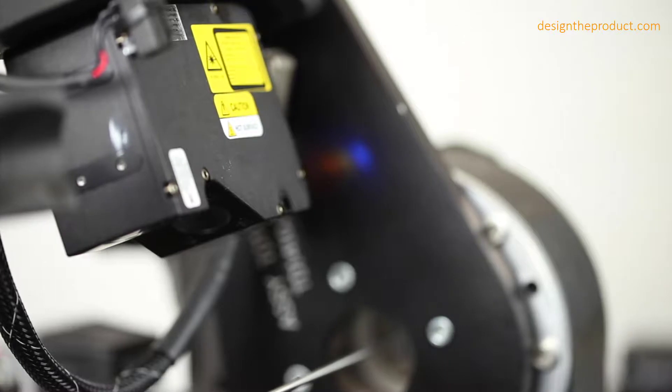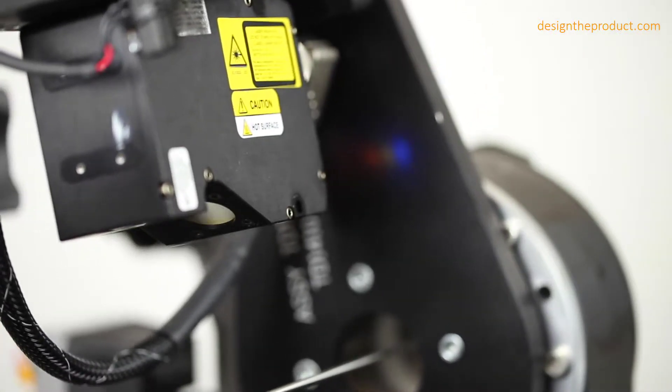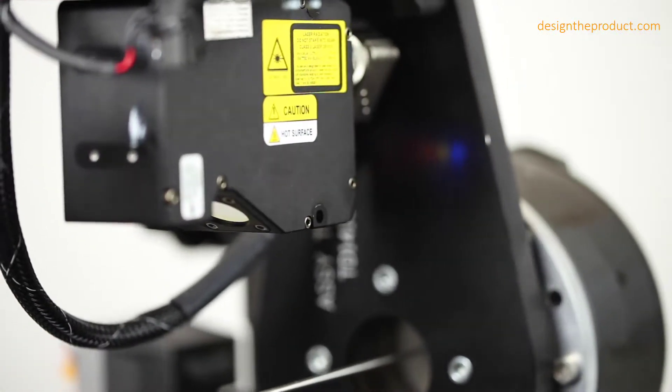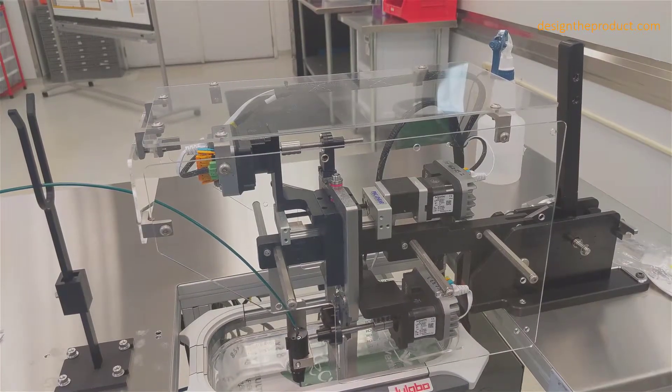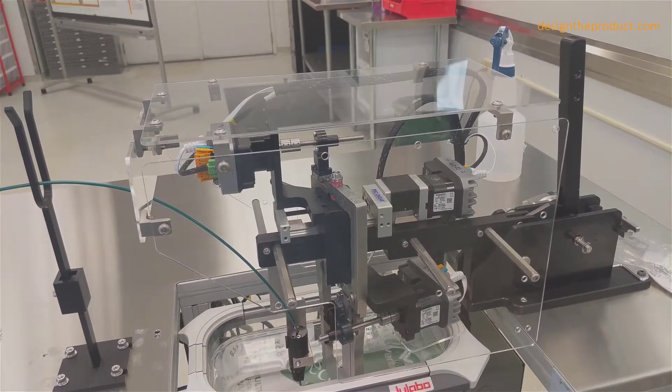We have developed a great little niche helping medical companies validate their devices. We do plenty of device design as well, but a lot of our focus is building custom test fixtures for DV testing.